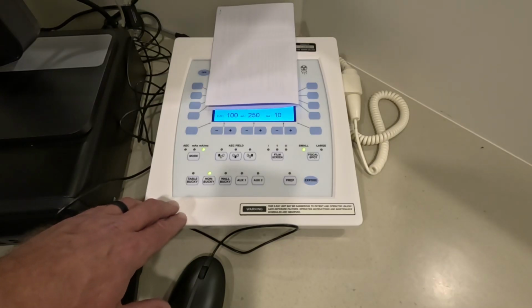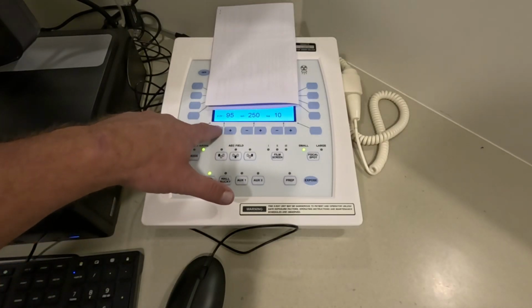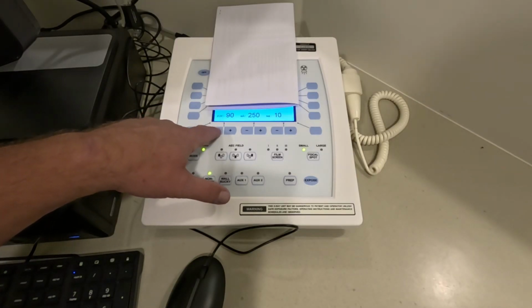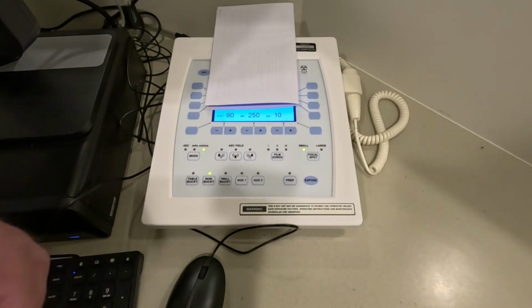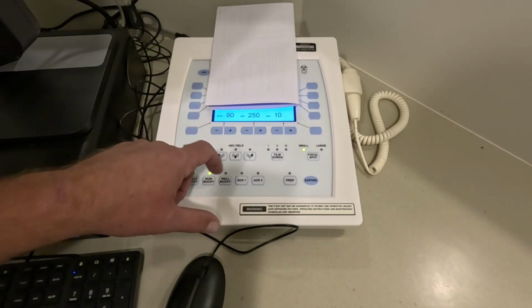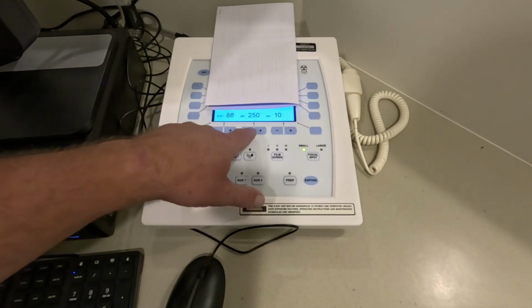So on our control panel, we control the quality of the x-ray beam, and we do that most specifically with KVP. There are other things that affect quality, but KVP is the thing that we use to control the quality of the x-ray beam. Filtration does too. There are videos that I'll record later in the semester, in class, in lecture, and I'll explain that. Okay, so we've got KVP. KVP is the quality of the x-ray beam.